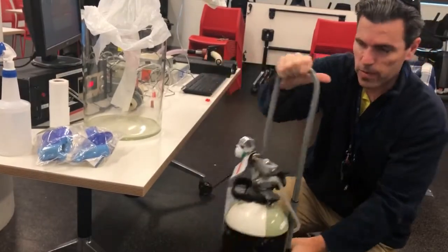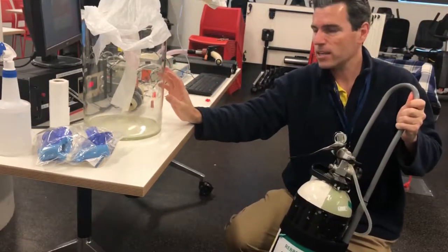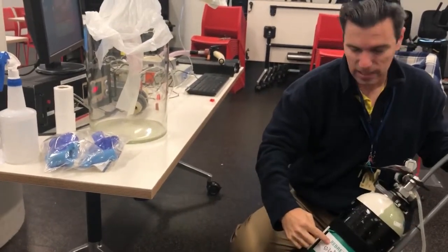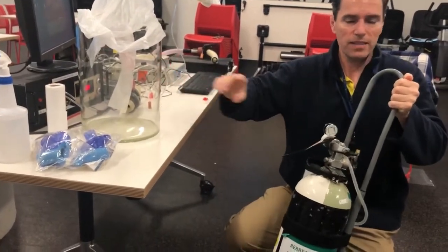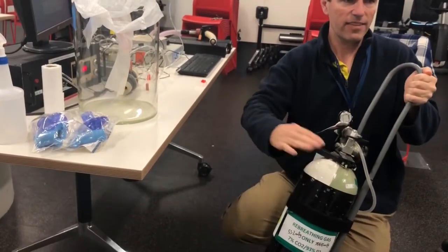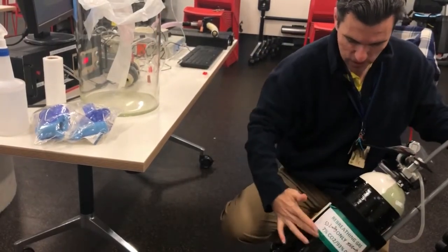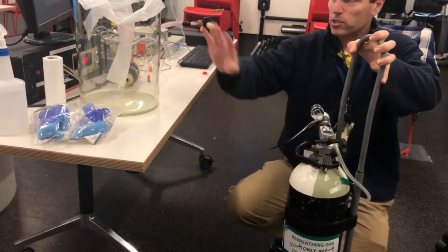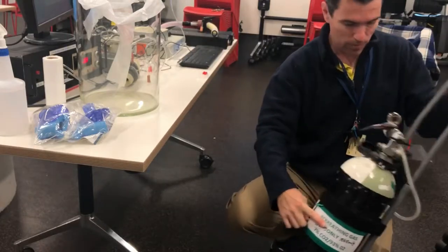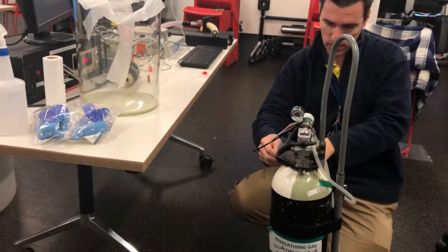This is the rebreathing gas. To minimize the risk of putting the wrong gas in the bag — we don't want an asphyxiant gas — it always needs to be something capable of supporting life. Having 93% oxygen is fine; pure oxygen would be fine. But calibration gases we use have very low oxygen concentration, so we put these big green stickers saying 'rebreathing gas' on the cylinder. Every single time, just as you're about to put this in the bag, you check that it says 'rebreathing'.